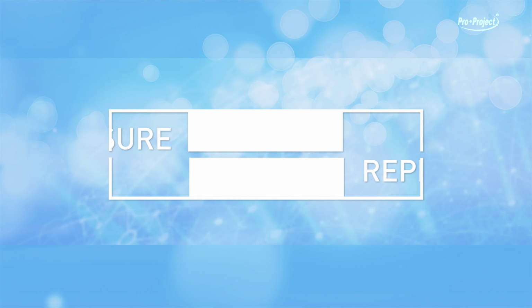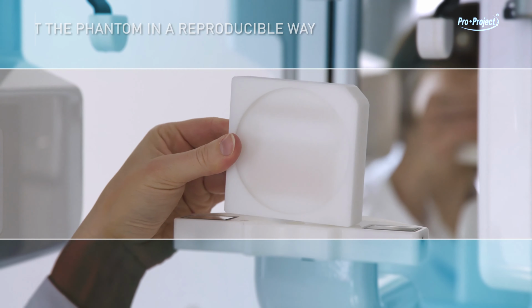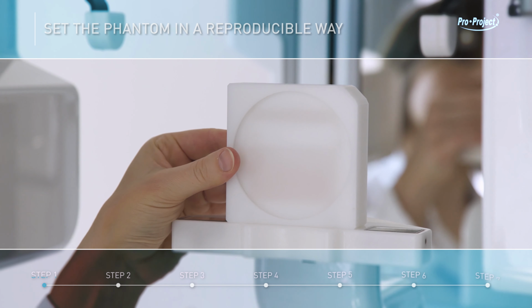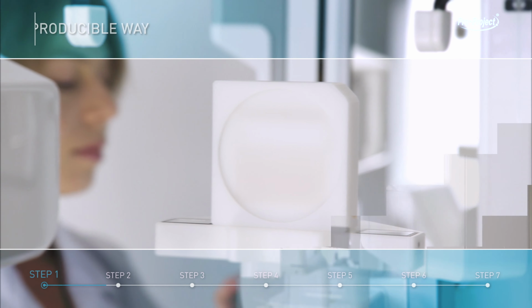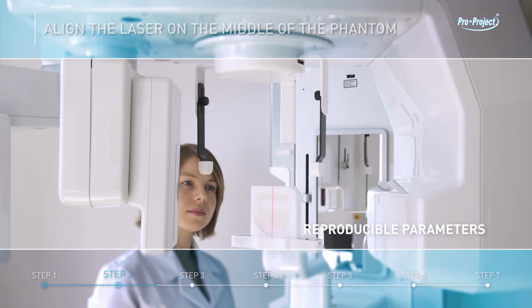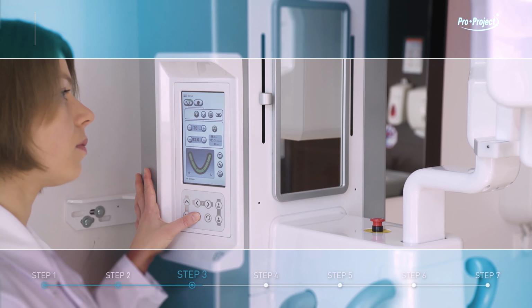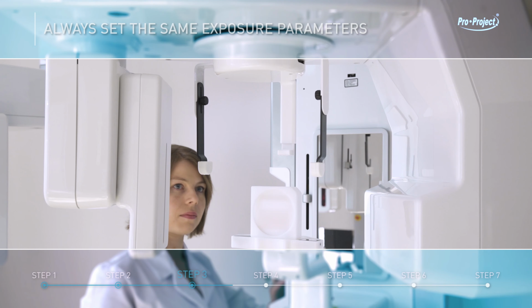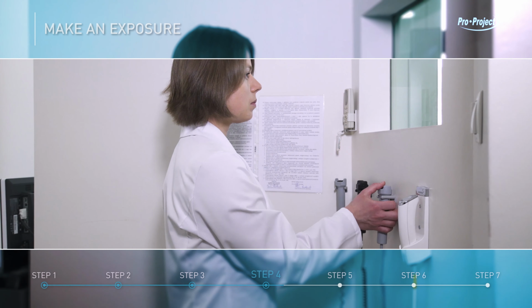Dose exposure reproducibility. Reproducible setting. Set the Phantom in a reproducible way. Align the laser on the middle of the Phantom. Always set the same exposure parameters. Make an exposure.